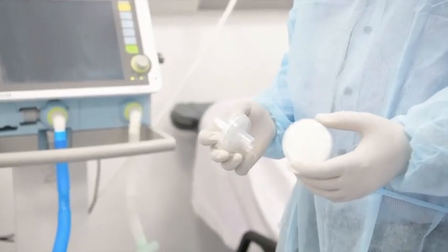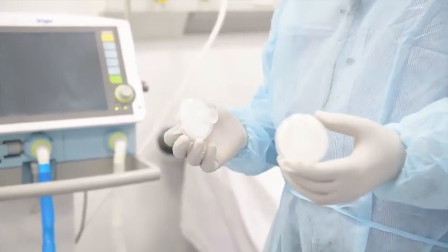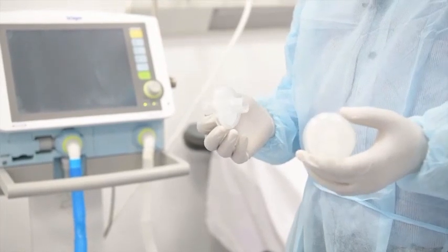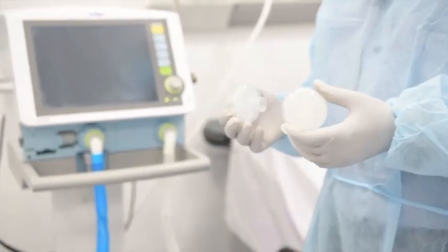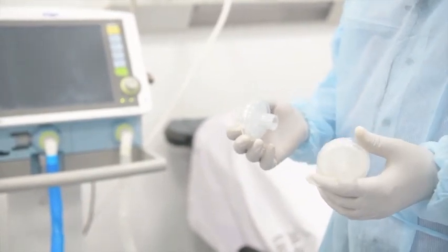For each patient, you need two bacterial filters. This will help to reduce cross-contamination between the two patients. And each will be connected on inspiratory and expiratory.